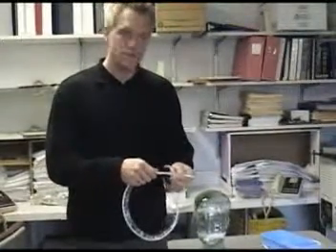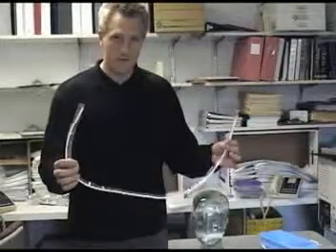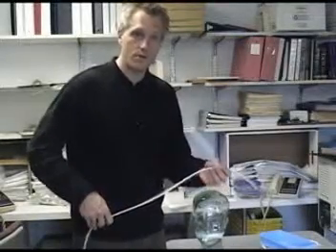Just like your closed suction system, when you start to funnel the catheter, you're going to push it out like this, and it's going to be a very similar kind of feel. Also, what it allows you to do is have the catheter back here, and if it hits your hip, you don't have to worry about losing your sterility.